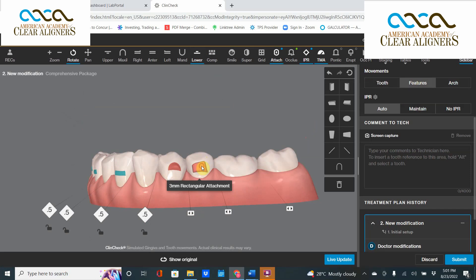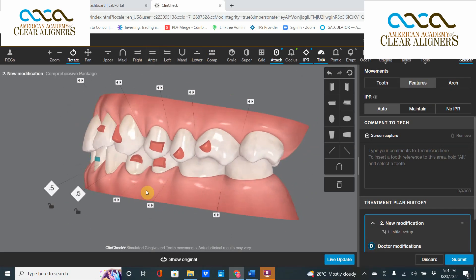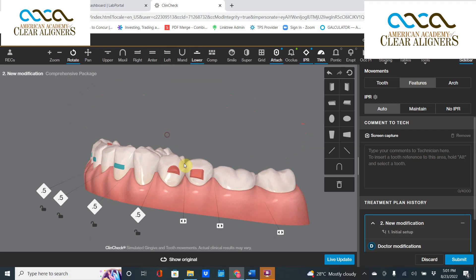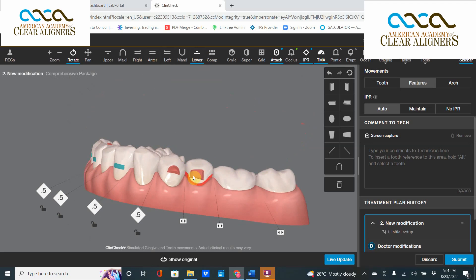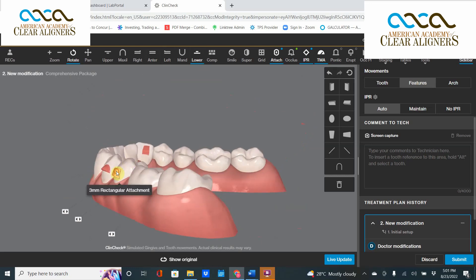The game is you can't let it touch the lower red line. Let's see if that was enough — just enough. Try and move it down as low as you can without touching the red line so that it doesn't hit the tooth. Once you hit the red line, it means it can't be manufactured.